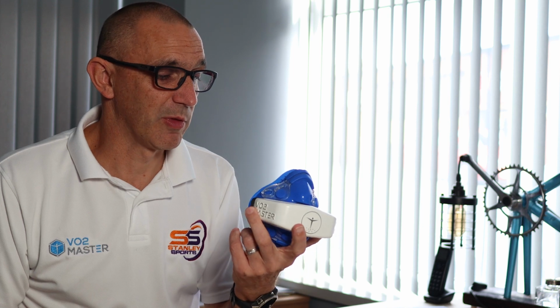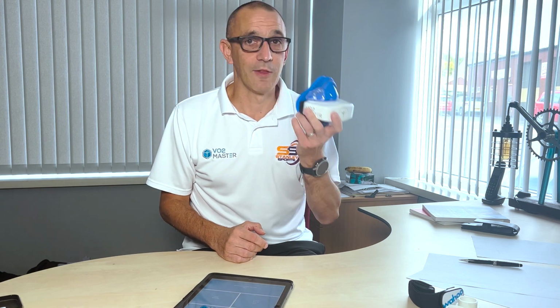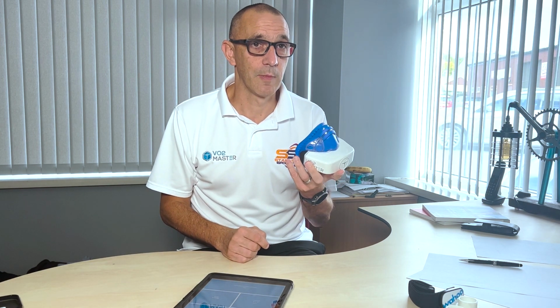The other thing I love doing with this is using the free protocol, where I literally set the thing going and off I go. And I'll quite often take myself out and do a park run. So you've seen me around the country, around the world, sticking this on, and I'm off for my 5K park run. And what the monitor is doing at that point is actually picking up GPS data, so I can see how fast I am, where I am on a map. It picks up my heart rate data from the heart rate that I'm using. It picks up my stride foot pod data, and it collates all of that into the one data set, so that when I finished exercise, all that data is available to me.